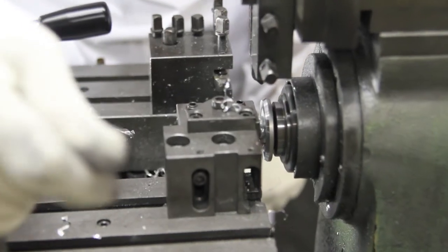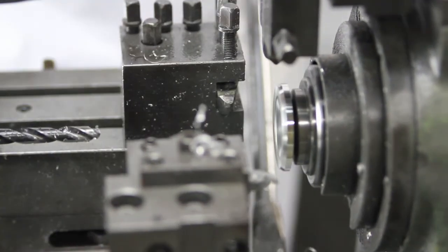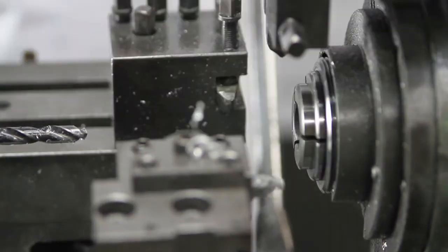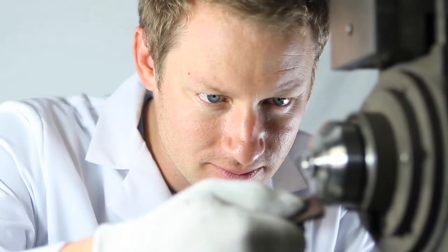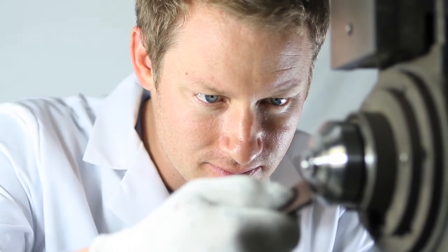And once our craftsmen got a hold of the design, they took care of the rest. With the meticulous handcrafted process, we're able to revive this stainless steel dual head stethoscope into what is now known as the MDF MD1 stethoscope.